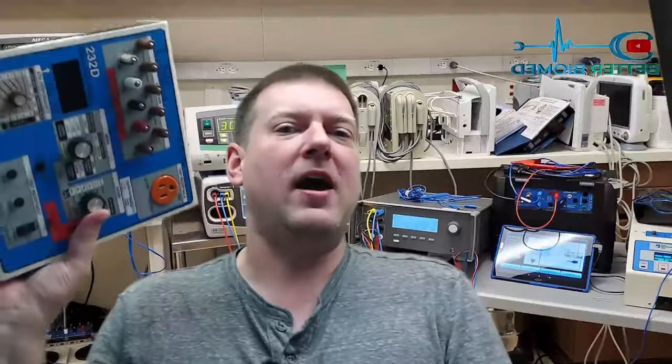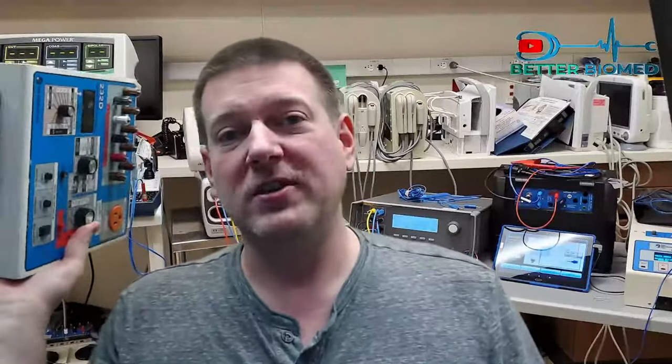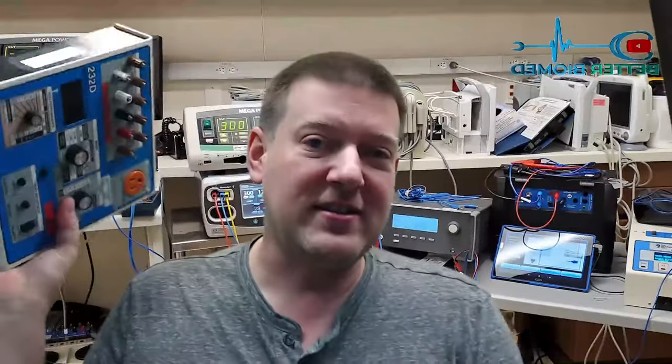Hey everyone, welcome back to Better Biomed. Today we're going to talk about test equipment. I tell people all the time that you can use your electrical safety meter for measuring anomalies with equipment, specifically with current and watching current draw.